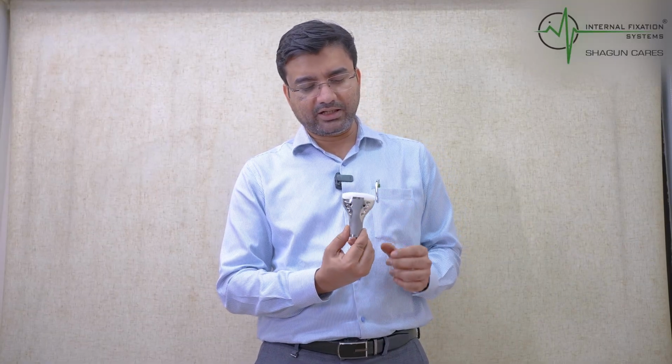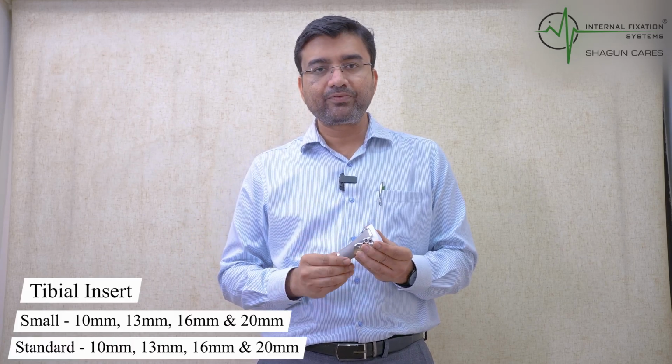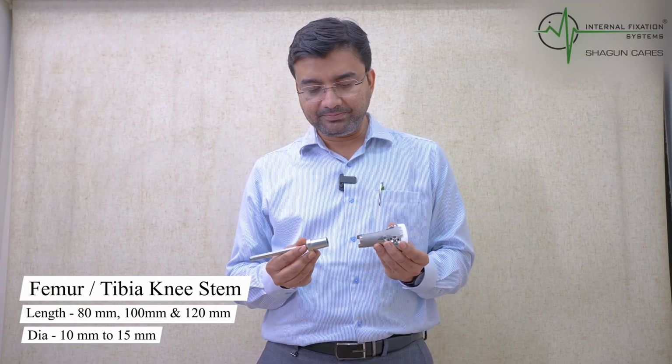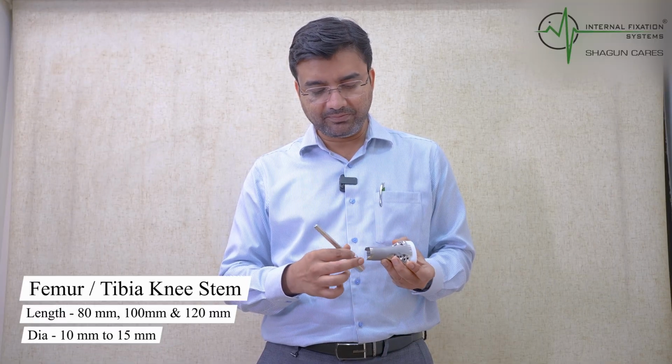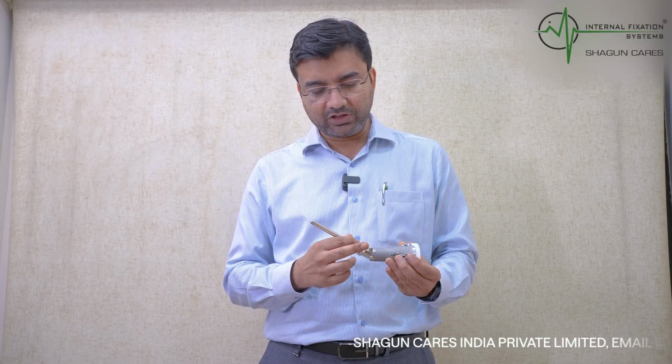So this is a classical proximal tibia component where you see this is the condylar segment, this is the insert. Now the next part which you see on the tibial aspect is your stem. You have this stem, you have this press fit mechanism, and we need to go in. Even on this stem you have the corresponding male and female ports. So this is the male port in the component. You are going to use it, you are going to fix it, this is going to lock it. So this goes into your tibial stem.